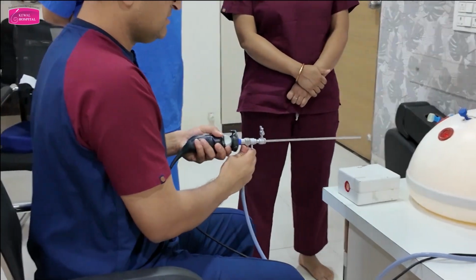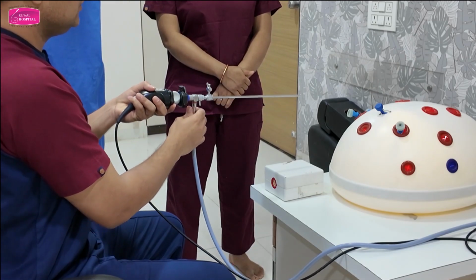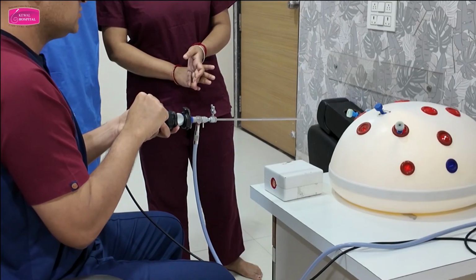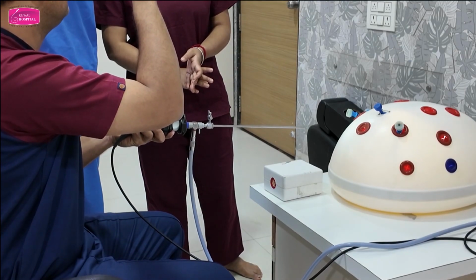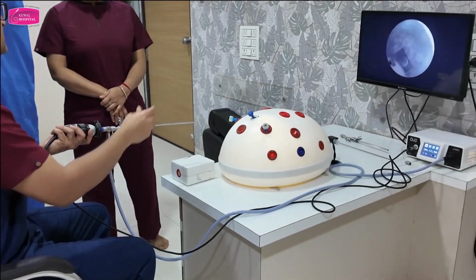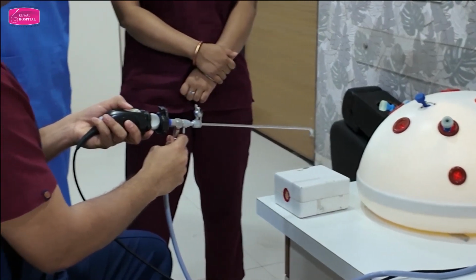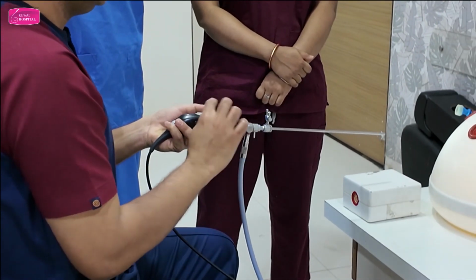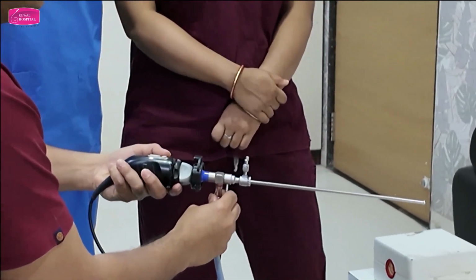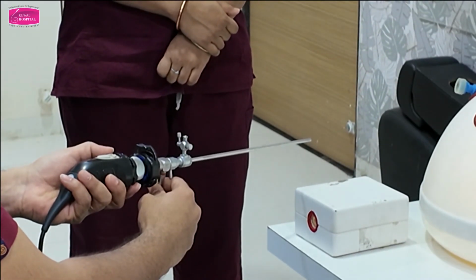Yes. So always remember, whenever you are holding a hysteroscope, you should hold it in this manner. This manner means the camera head should be facing up. You cannot tilt this. If you tilt this, then the picture will tilt. So always remember, camera head should face up. The movement of camera head will not be like this. It will be only in horizontal planes. Got this? Yes. Remember this.